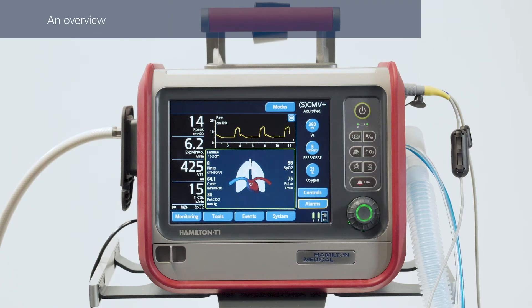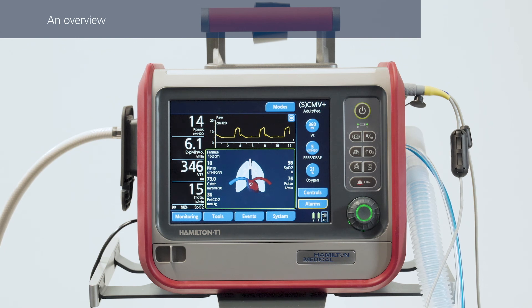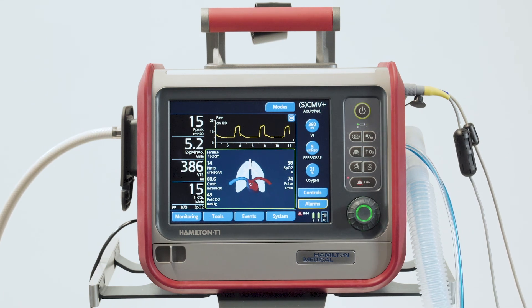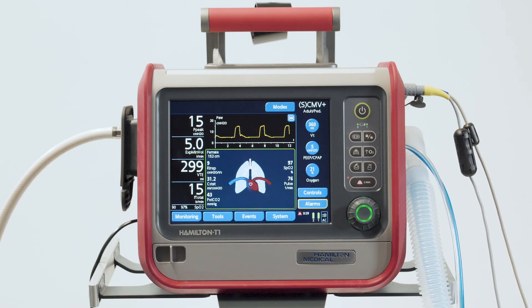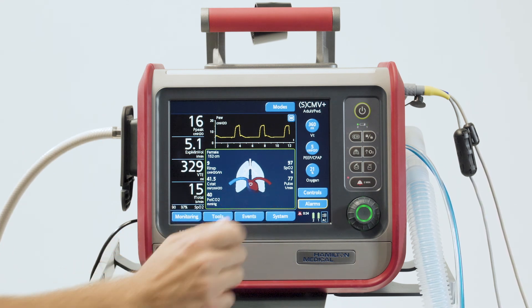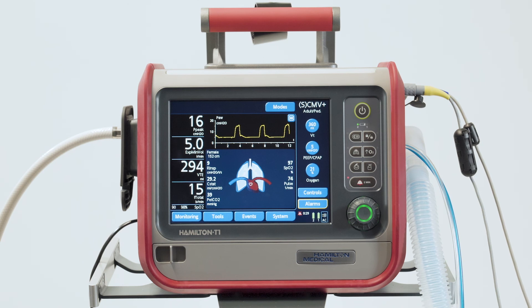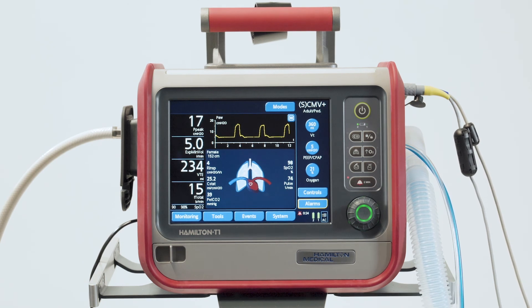During active ventilation, you can see all the available patient data. The biggest part of the display is dedicated to patient monitoring. In the center, you can see two primary graphic areas. One is reserved for the pressure-time waveform and is always displayed. Right underneath that, there's another part that you can customize to suit yourself. You can select what you would like to be displayed, whether it's other waveforms, loops, trends, or even intelligent graphic panels, as shown here.